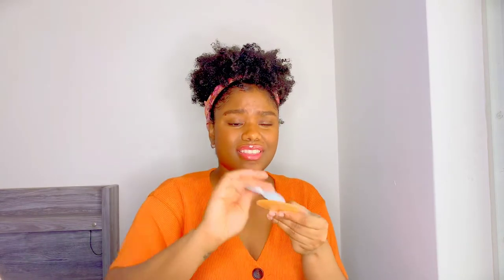It also comes with this extra piece. I'm not really sure what it's for — it does have a little clip on the back so you can wear it under your clothes. I was wearing it in my underwear. I don't know if it's meant to be clipped on or if it's to stick the pads.